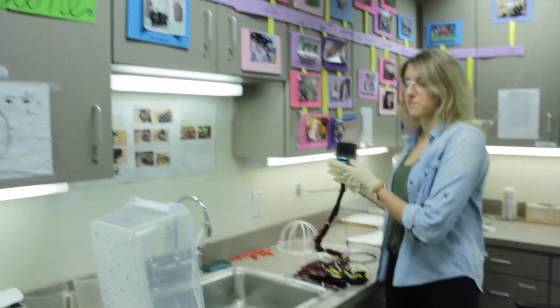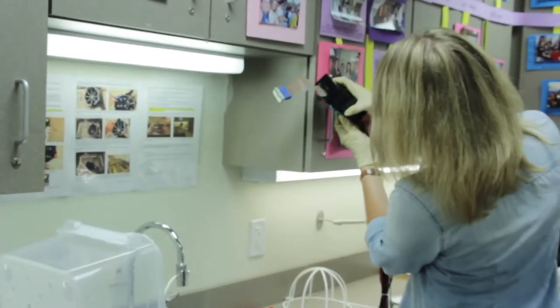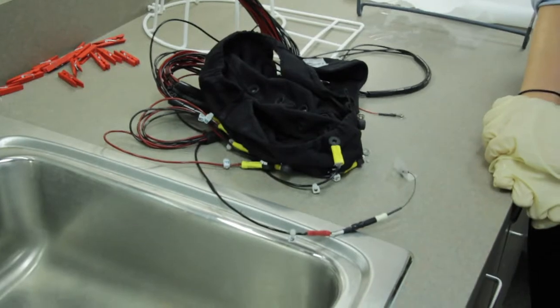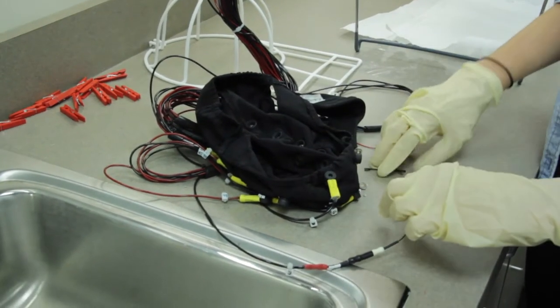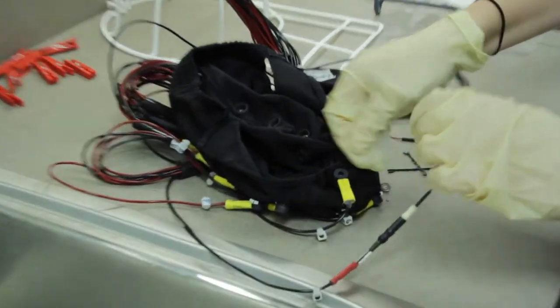Clip the end of the cable on the cabinet handle to the right of the sink. Remove tape and pins from the cap. Take out any replacement electrodes and replace them with the original electrodes.